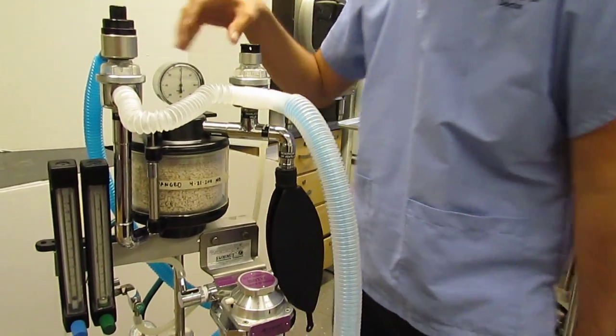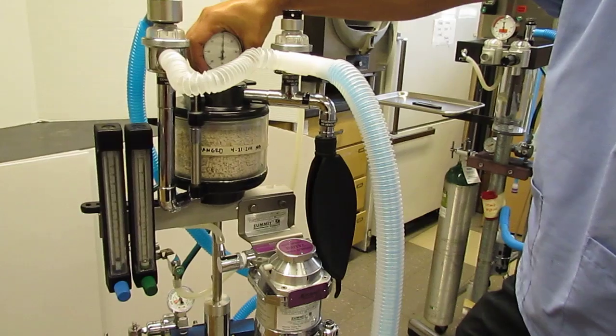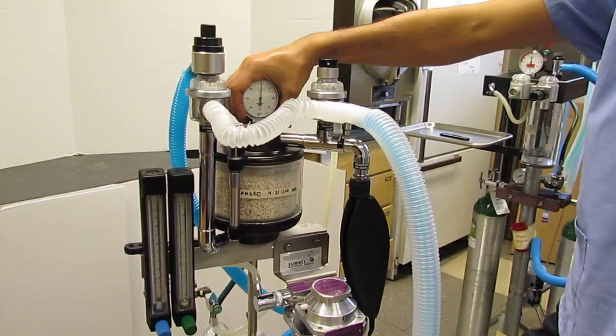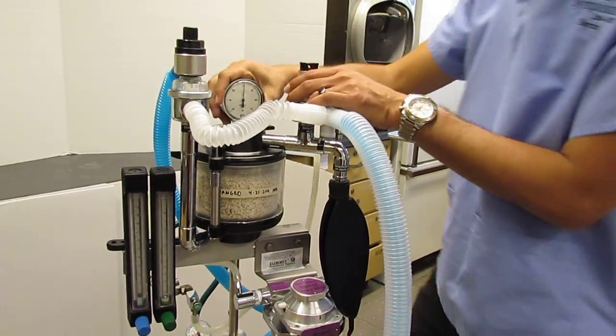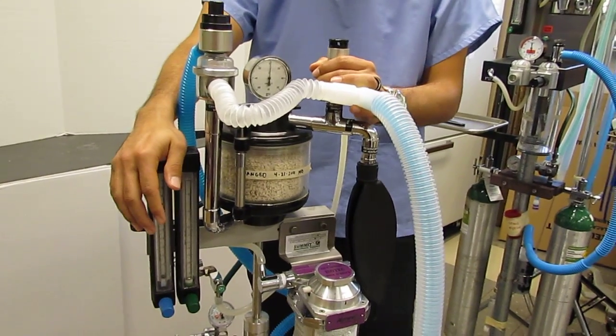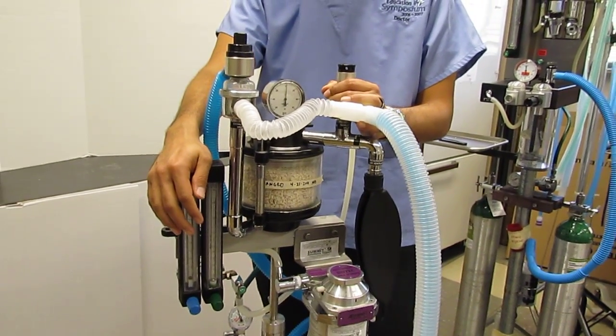And with that, that is the machine as thorough as possible, and every single component should be understood and every single component should be identified in this machine. With that, I think we have identified everything.